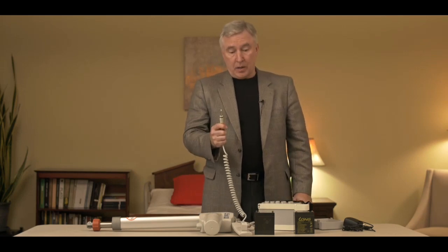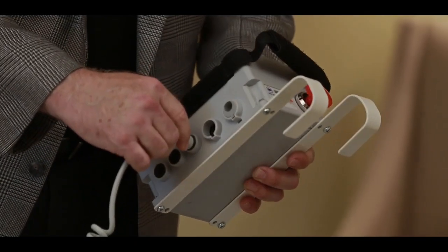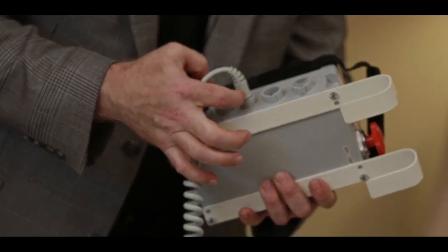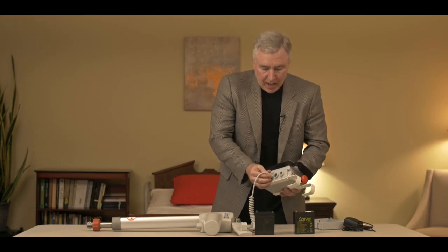One of the most common things we find with this system is when you get a brand new unit straight out of the box and something isn't working — more than likely the culprit is the actuator plug. When plugging the actuator into the unit, there are times where it doesn't fit as easily as you'd like, so you want to make sure you push it in hard enough that you see no space between the rim on the actuator and the control box. If it's not plugged in all the way, your lift's not going to work. It's the most common reason a person reports the lift not working out of the box, so check that actuator cable.